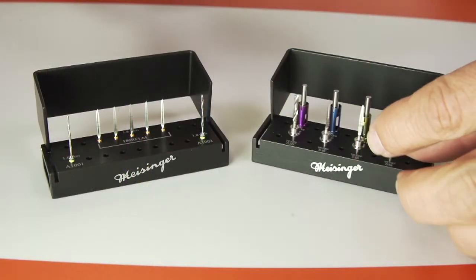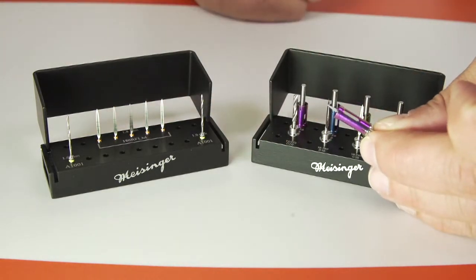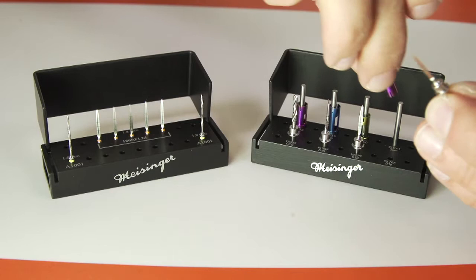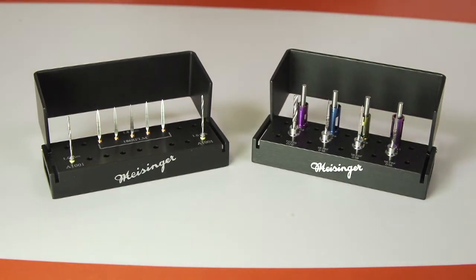These little depth stops will go right on the bayonets or twist drill. They lock right into place, allowing precisely the depth that you want — either 5, 6, 7, or 8 millimeters in depth. They lock right in place, allowing your preparation and depths to be perfect.